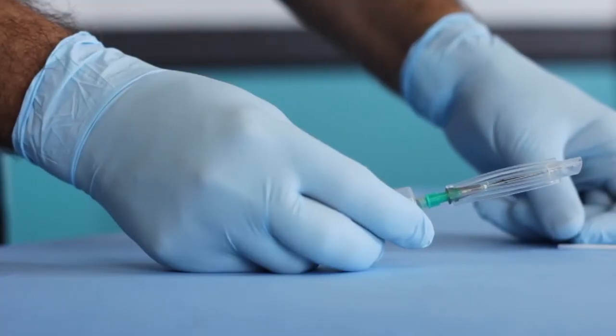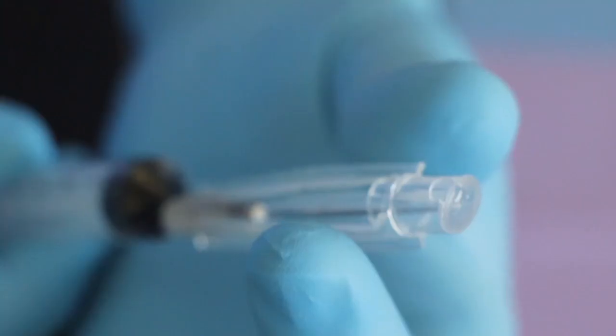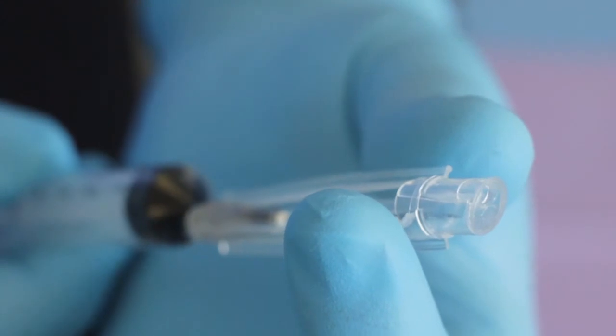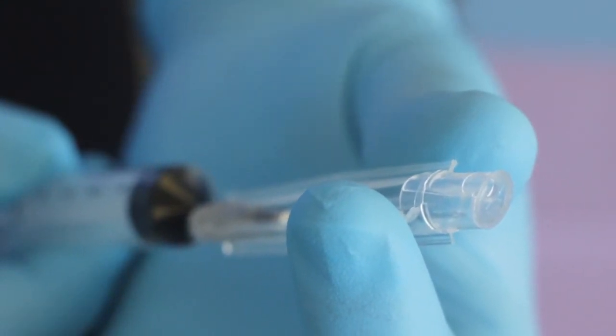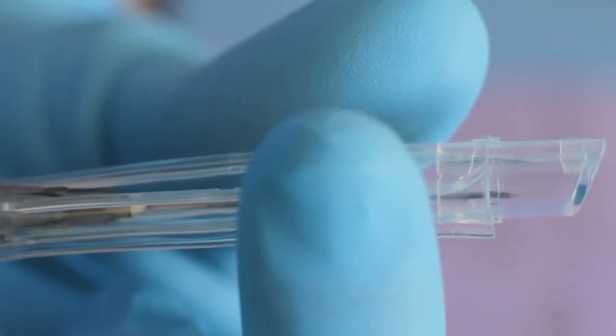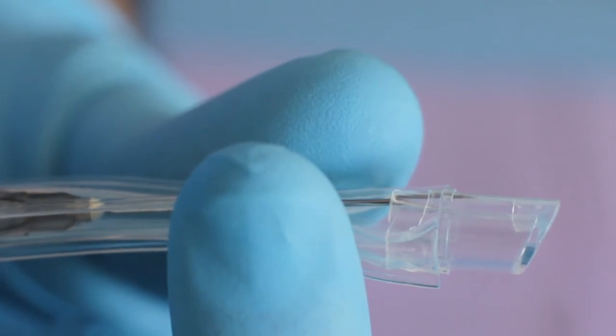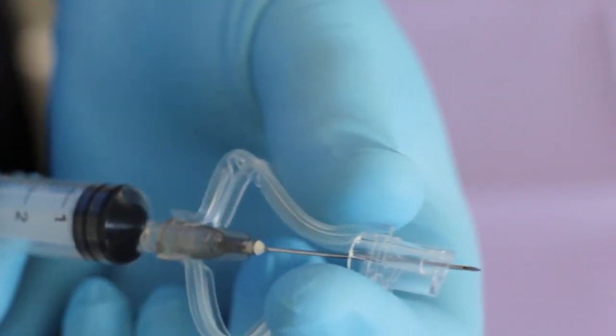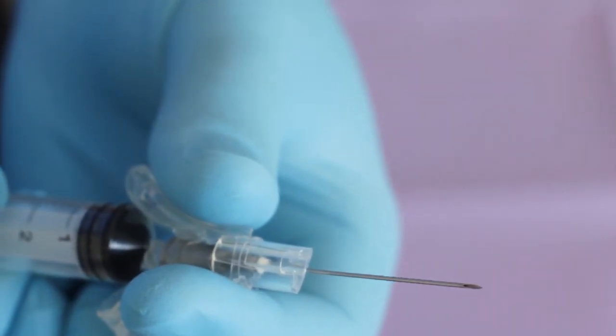Hold the syringe and needle in one hand, with the small opening in the protective cap pointing up. Hold the needle's protective sleeve between the thumb and index finger of the other hand. With a gentle twist of the wrist, redirect the needle to touch the upper inner surface of the protective cover. Hold it in this position and gently slide the protective cover open with the fingers of the other hand.